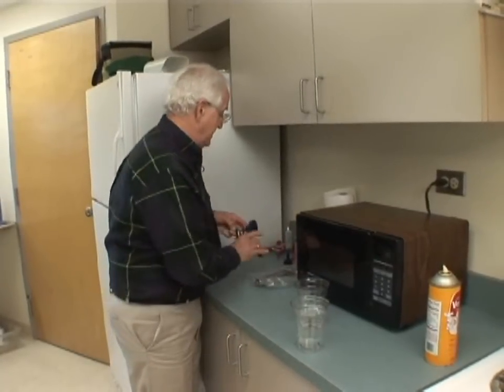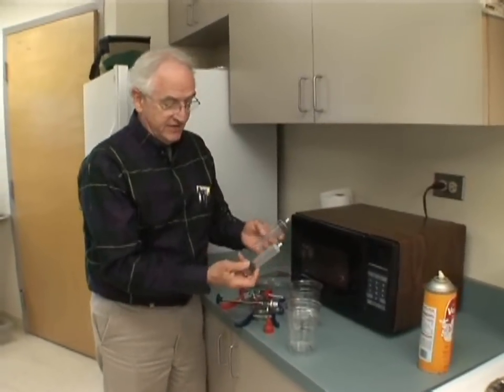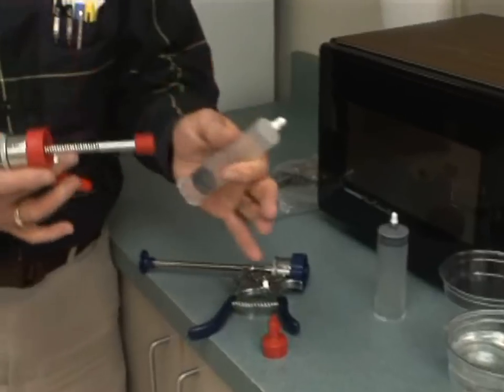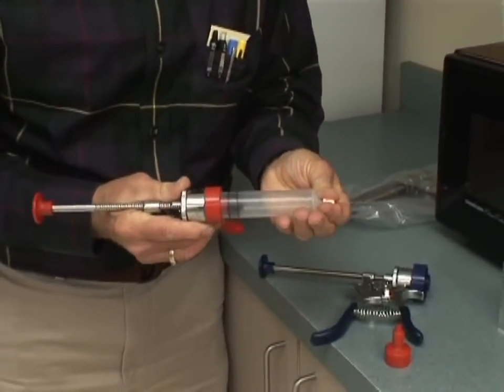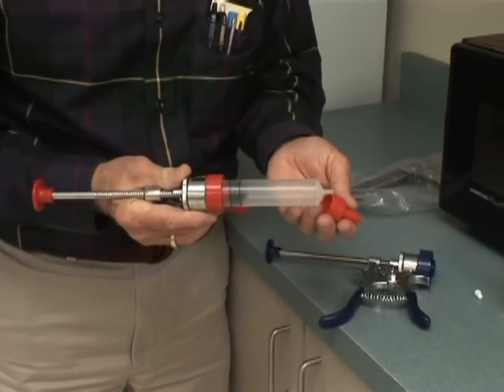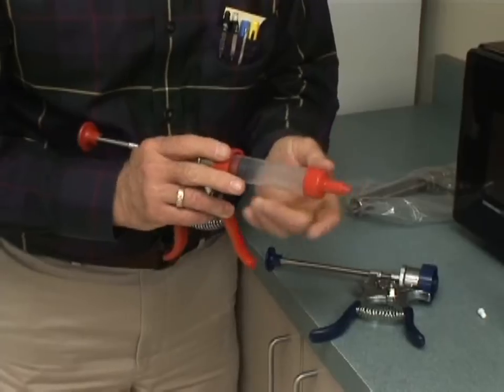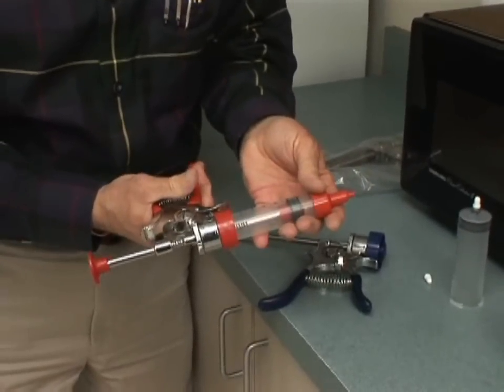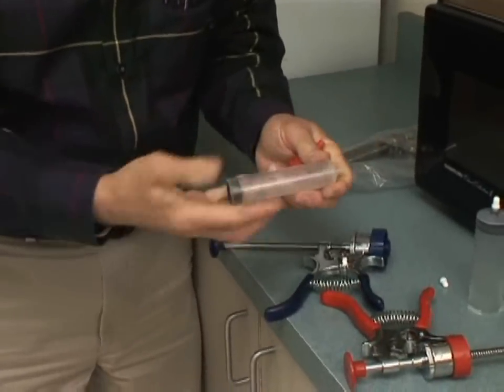One other option is you can buy automatic pistol grip syringes that have sterile components from the manufacturer. Right out of the package, this entire unit is sterile. Put the unit together, then put an appropriate size needle — one inch for intramuscular, or three-quarter to half inch for sub-q. Slide the needle protector over the top to keep the needle from breaking. Now it's ready to go — you can suck up your vaccine or medication with a pistol grip syringe that came from the manufacturer as a sterile unit ready to use.